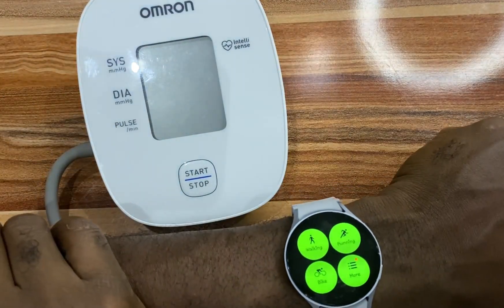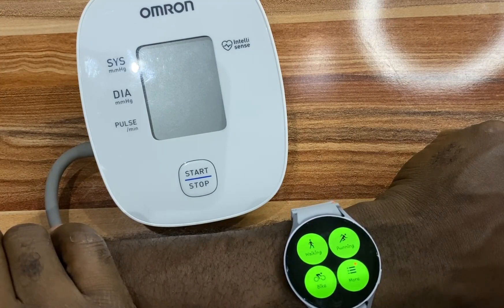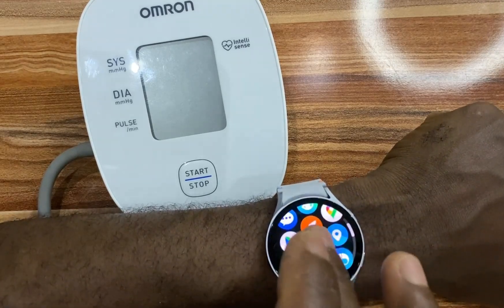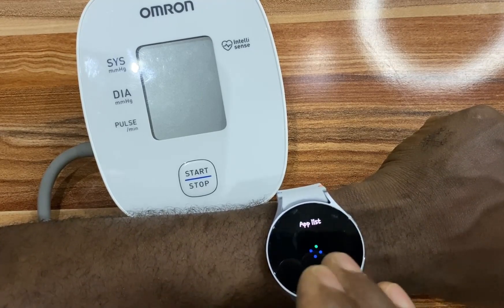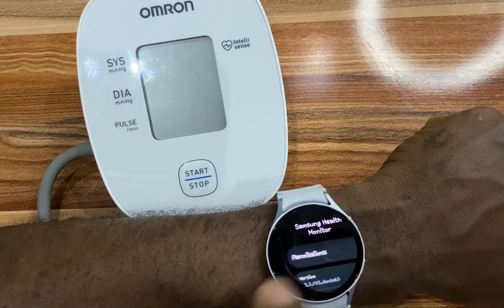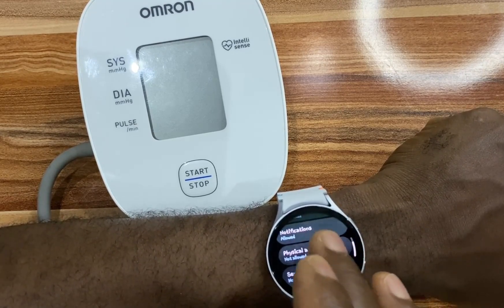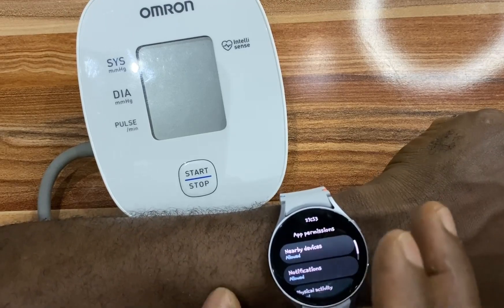It says: allow Samsung Health Monitor to use data from watch sensors. We need to grant permissions to SHM on the watch. Simply go to the settings app on the watch, locate Apps, go to App List, and locate SHM which you have just installed on the watch. Go to Permissions and you can see all the permissions that are required. Go ahead and grant all of these permissions.